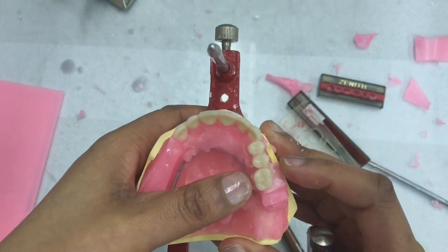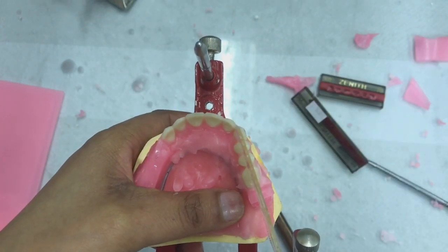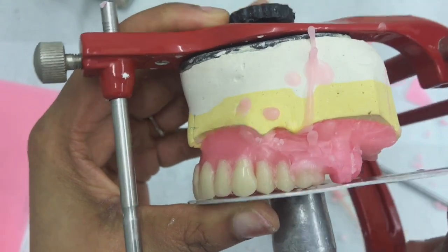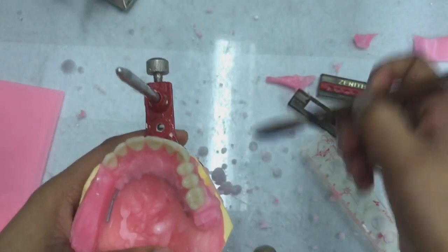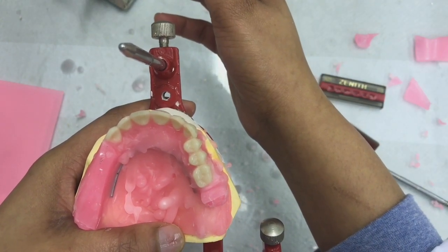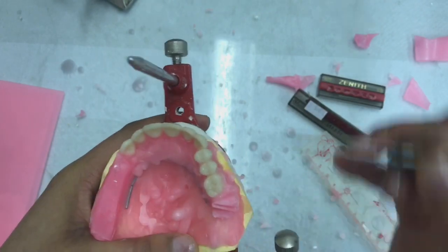Okay, the molar is slightly too lingual, so I'm just going to move it out slightly. That seems fine, so I'm just again going to double check to see if the relationship of the cusp to the table is still maintained. So yeah, I'm going to move on to my last molar, and what I want to try and achieve is all the cusps must be off the occlusal table, but they must then follow that initial inclination from the first molar.